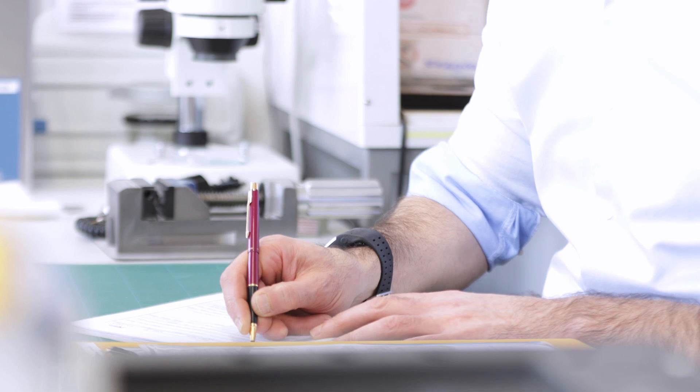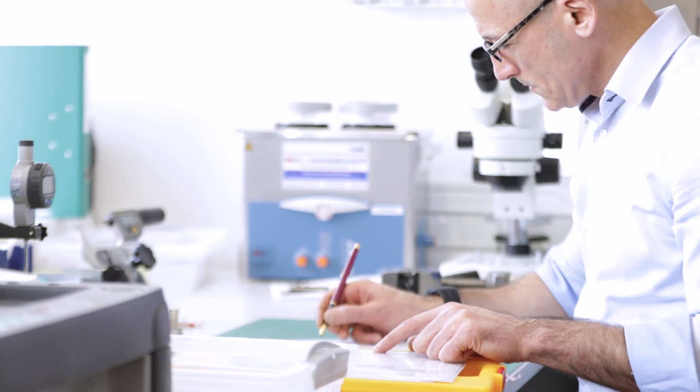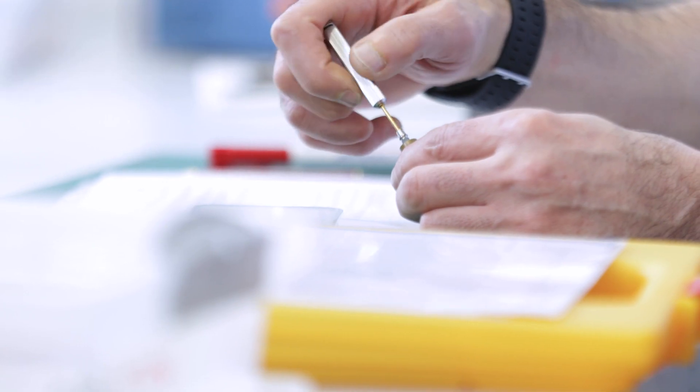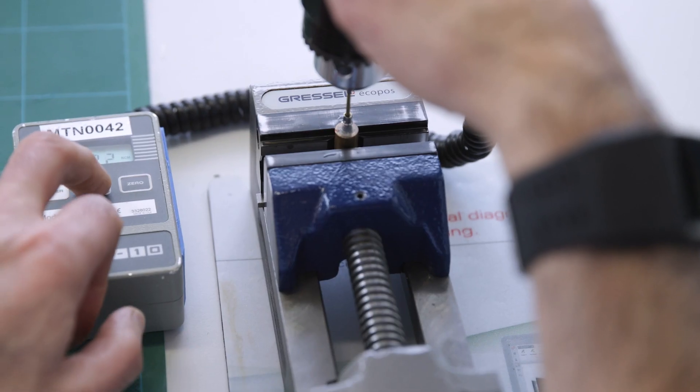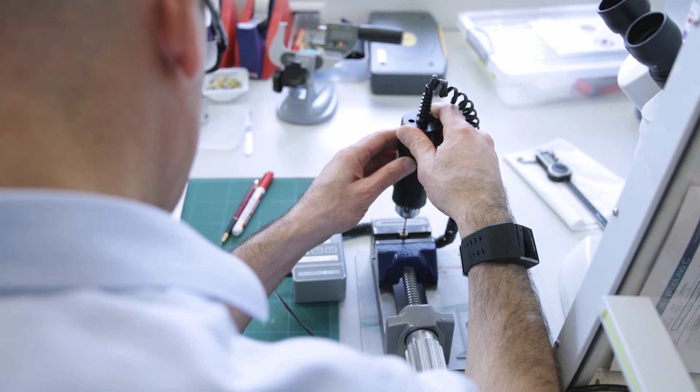The parts are assembled and the screws are tightened according to the instruction for use. The screws are tightened with a digital torque sensor in order to assure accuracy and reproducibility.